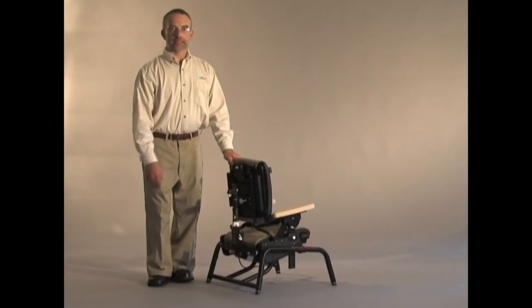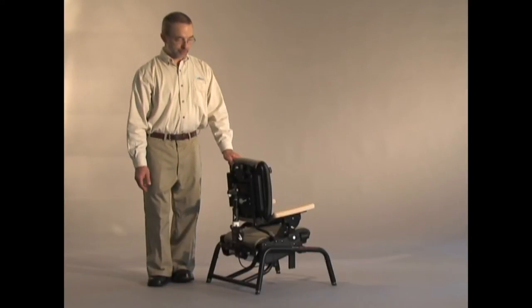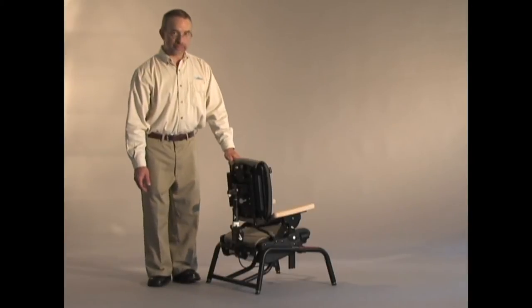Now I'd like to demonstrate the dynamic spring feature that we provide, especially on the standard base chair.